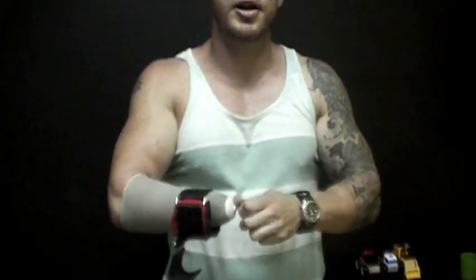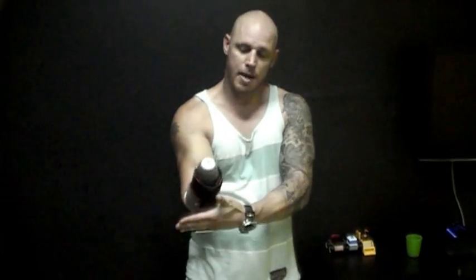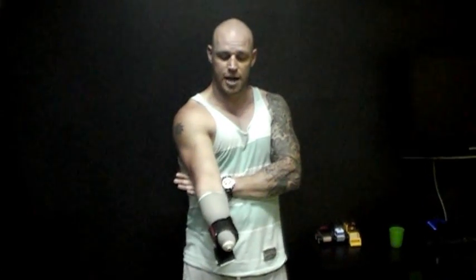There's also another option: if you want to do curls or cables and don't want to use the prosthetic arms, just use a lifting hook — very easy to buy off the internet. Put your arm through there, always use the liner to protect your skin (which I found out the hard way). Just loop it through, twist your arm to any angle, put a dumbbell in there and curl it. You'll have to judge how far you can extend since it can slip off, but it allows you to do curls, cables, any exercise — your imagination is your only limiting factor.